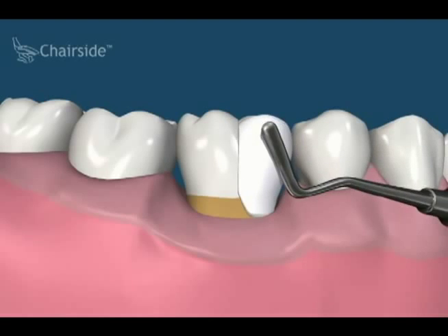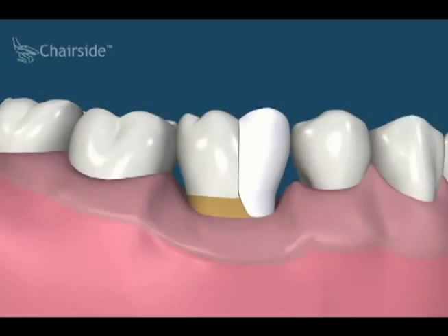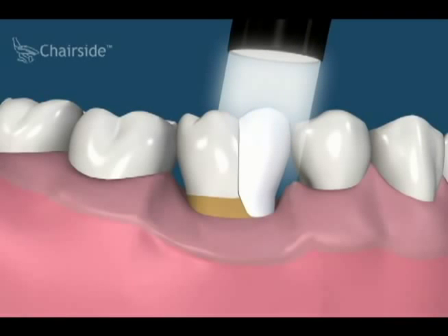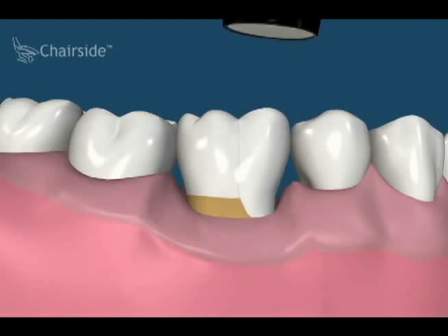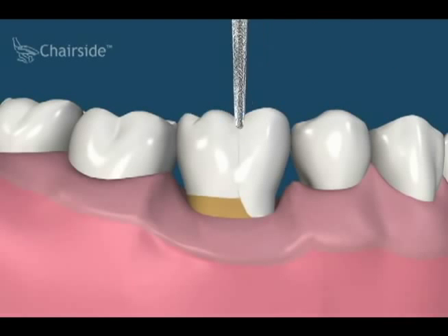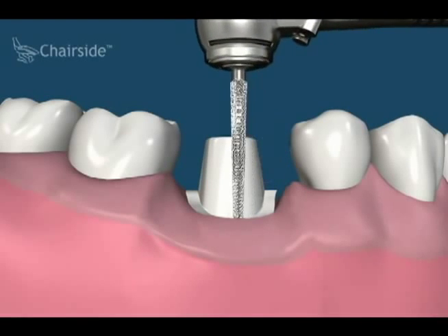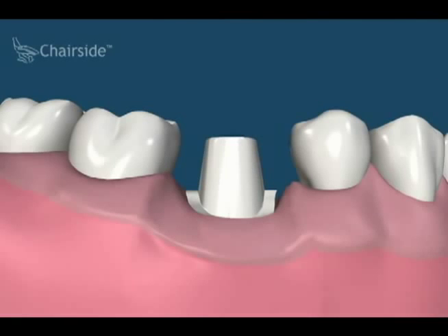In this situation, a light-cured resin filling is used first to replace the lost cusp. This may be adequate in some situations, but the best way to restore a tooth with a large fracture is with a crown. The tooth is prepared and the crown cemented on top.